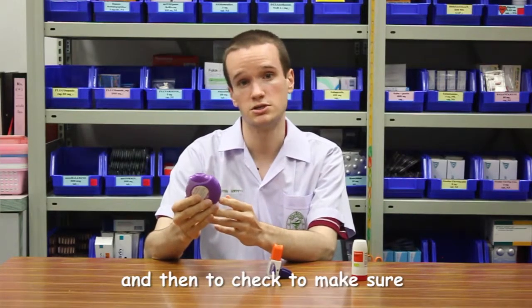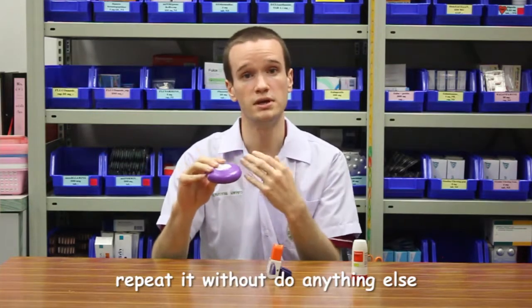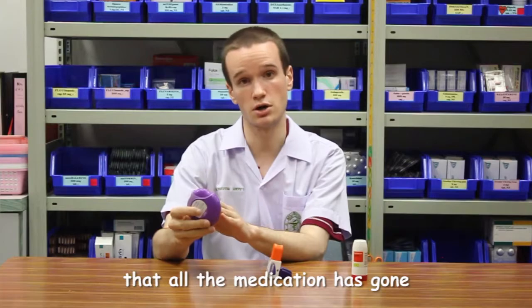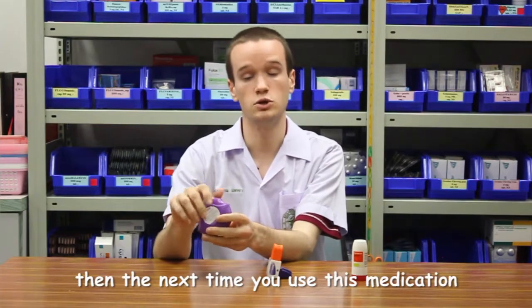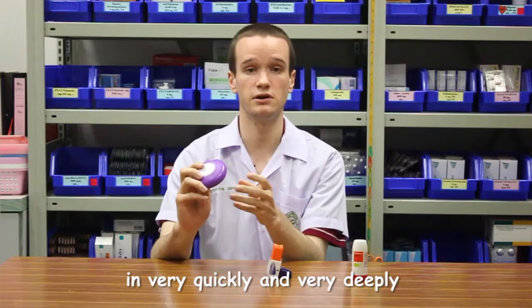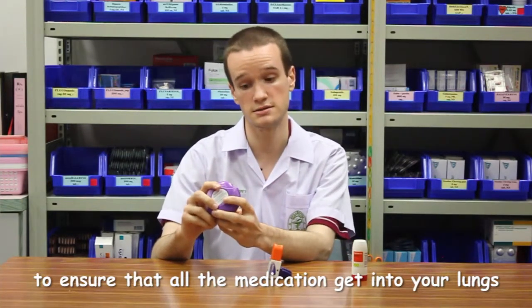And then to make sure that you've gotten all the medication, you can certainly take another breath or repeat it without doing anything else. And then to check to make sure all the medication is gone, you can dump it out into your hand and see if there's any powder. If there is any powder, then the next time you use this medication, you want to make sure that you're breathing in very quickly and very deeply to ensure that all of the medication gets into your lungs.